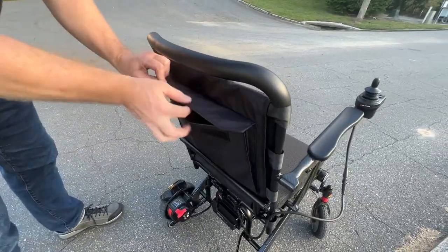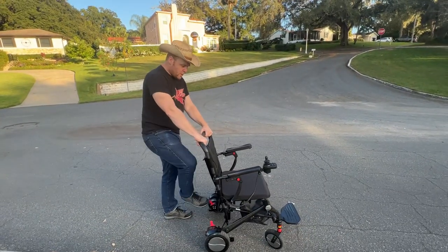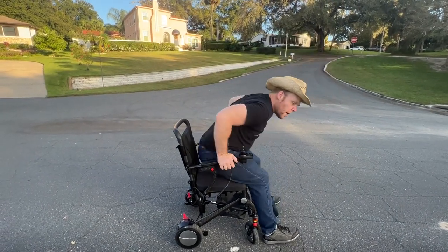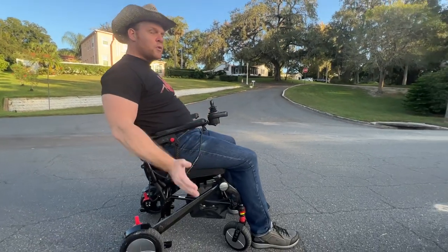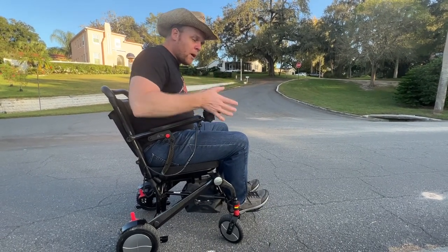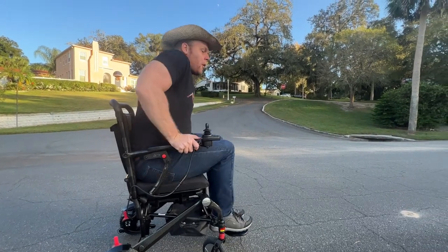It has two 150-watt motors. It's in freewheel right now — I'm putting the chair in locked mode. It has an advanced torque control system, so these two 150-watt motors are very powerful. Such a comfortable chair — I absolutely love it. I love the anti-slip beads, the comfort of the seat, how the joystick is set up, and the fact that this chair holds up to 300 pounds.